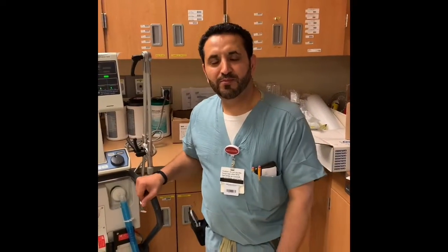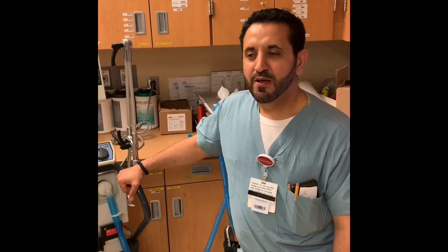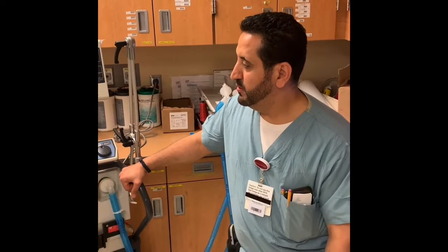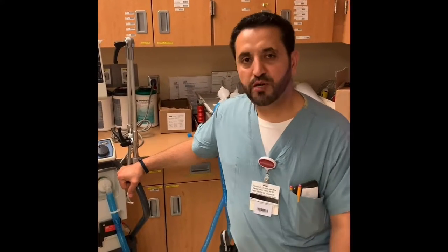Good afternoon, my name is Uttar. I'm a charge respiratory therapist here at St. Joe's Mercy Hospital. I've had a lot of questions about bi-level APRV, so today I'm going to do a little introduction and initial setup for bi-level and moving on to APRV.